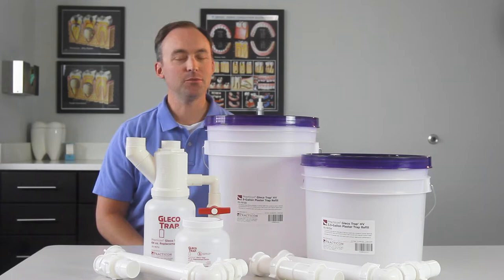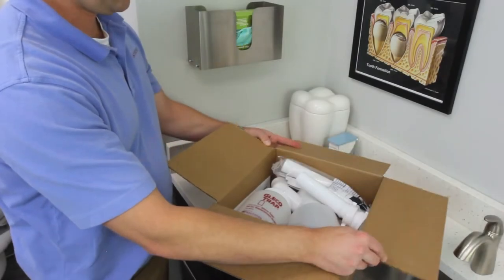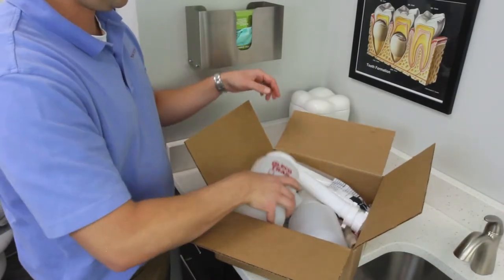Installation is easy and replacement is a snap. Your GlecoTrap ships with everything you need for installation.